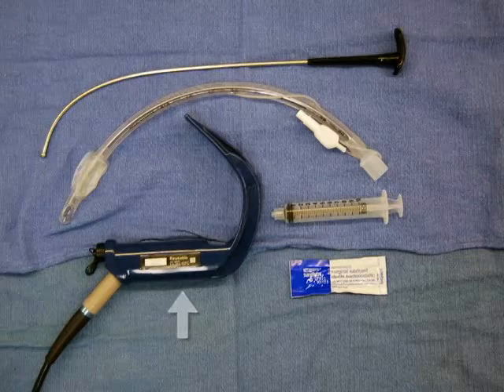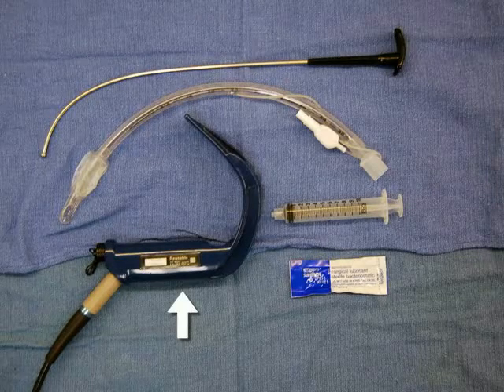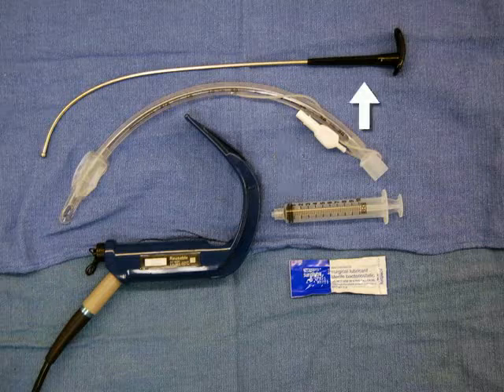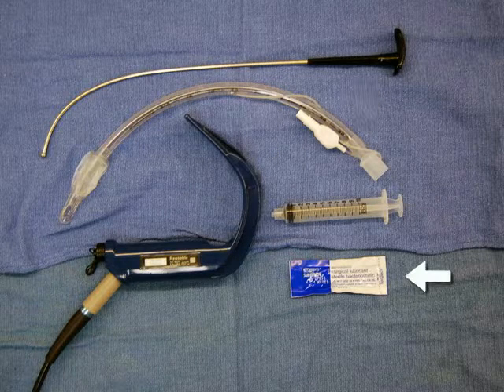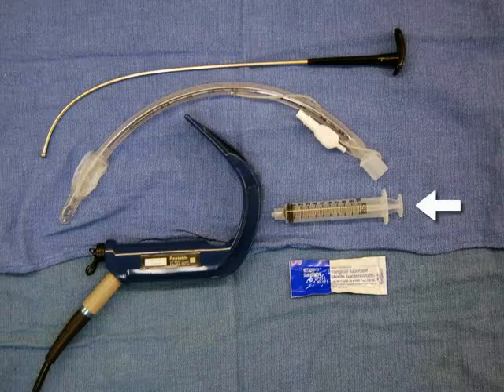You will need the GlideScope laryngoscope blade, an endotracheal tube, a GlideScope rigid stylet, surgery lube, and a 10 milliliter syringe.